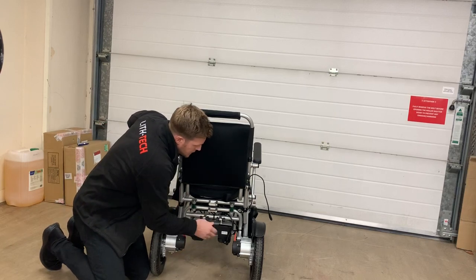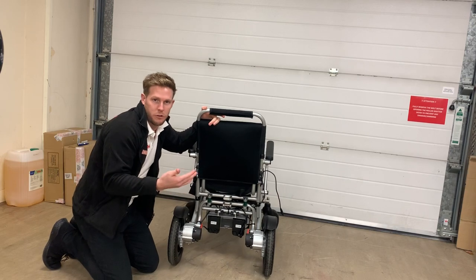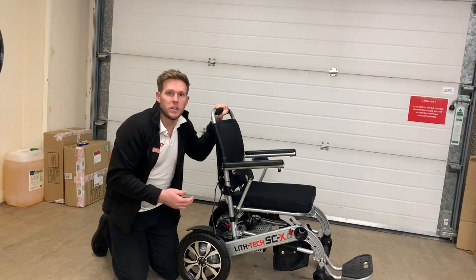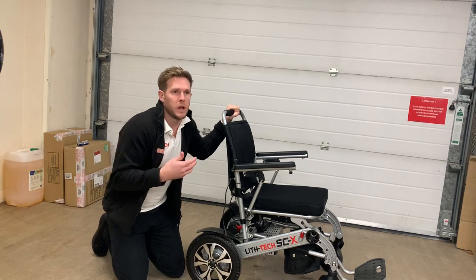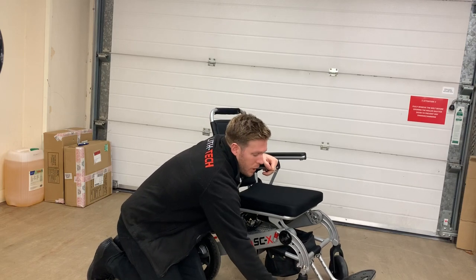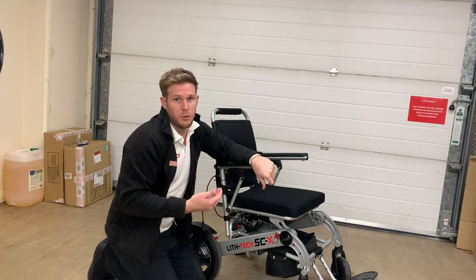As you can see, this is your ground clearance — there literally isn't another electric folding wheelchair on the market with this high ground clearance. It's got 12.5-inch rear tyres which are rubber — grippy, puncture-proof and solid, but also spongy, so going over kerbs and rough terrain it absorbs the impact for a much smoother ride. On the front we've put 8-inch solid PU tyres, completely puncture-proof, with larger front wheels than most chairs — great for kerbs, cobbles and a more comfortable ride overall.